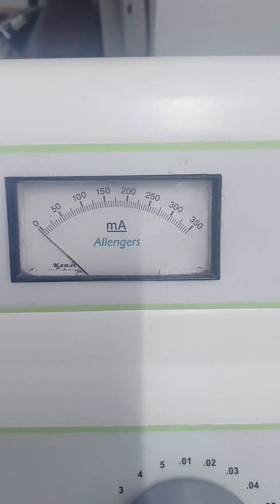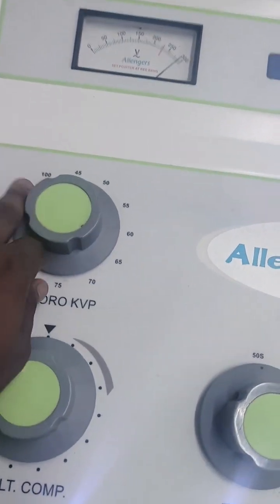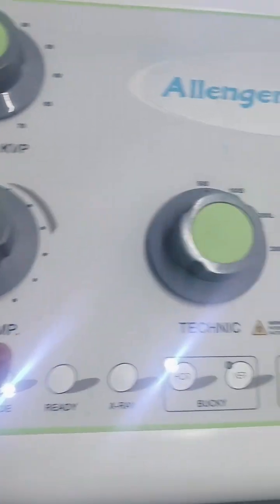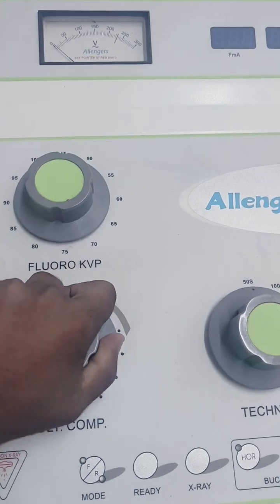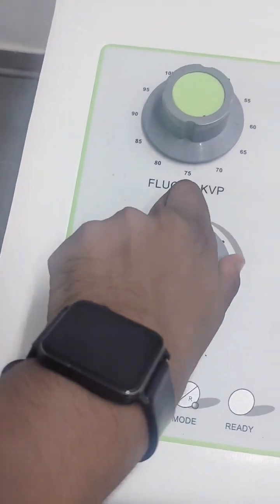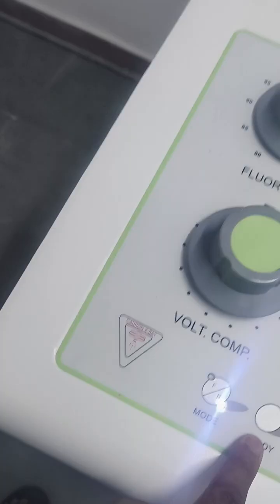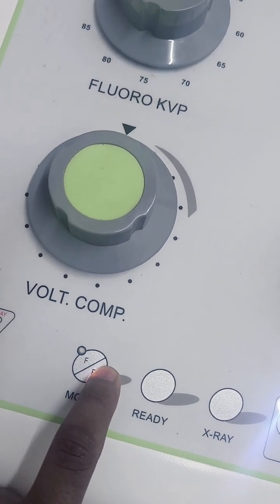Manual machines use 100 mA. Here is the fluoroscopy mode — it's an advanced CR system. There is a fluoroscopy kVp option here but it is not in use. The modes available are radiographic and fluoroscopy. Fluoroscopy takes live images or real-time imaging.